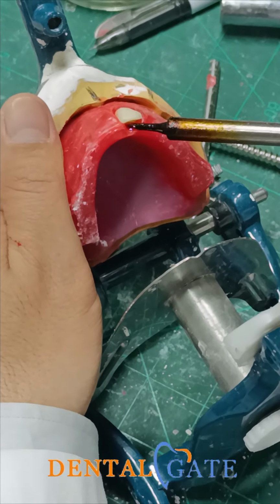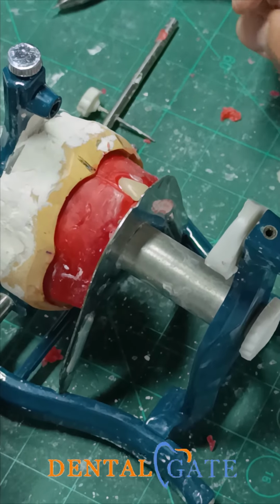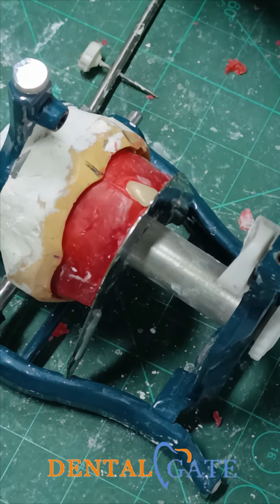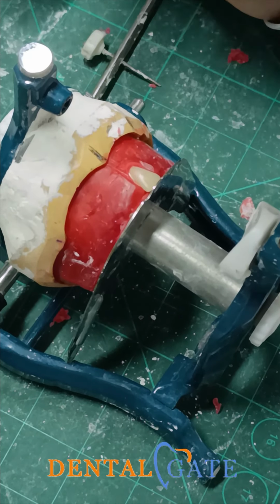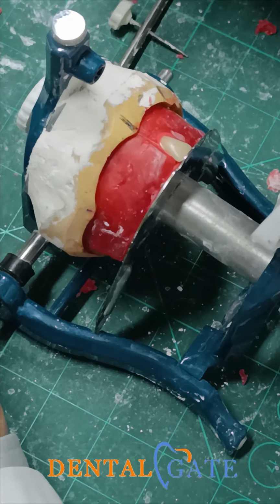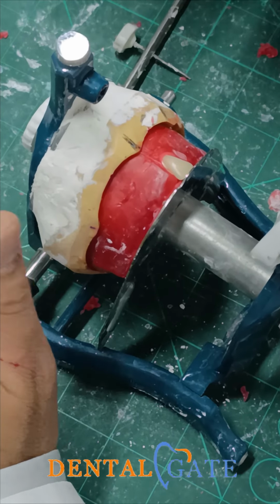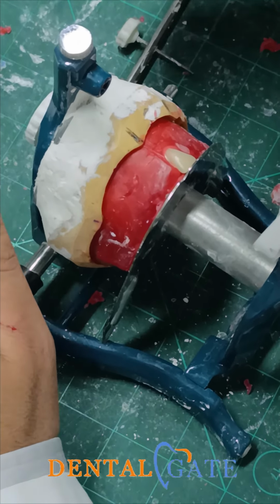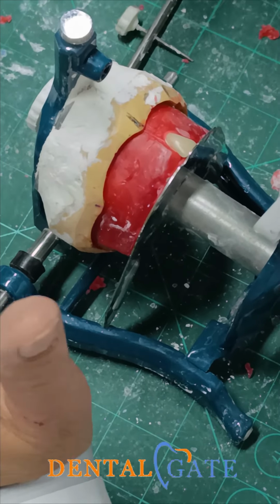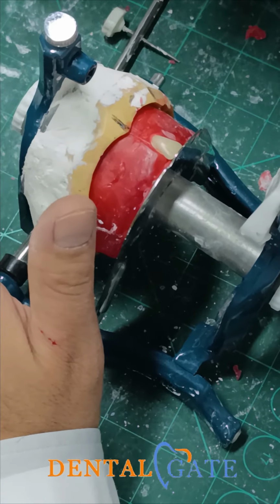For the central incisor. For the lateral incisor, there are two conditions. If you want to make it at the level of the central incisor, some references say that, because if we have an old patient with parafunctional movement, and we don't pay attention to the esthetics, we will make it at one level. But basically, typically, we will start with no contact, if we want to apply the balanced occlusion criteria, because it will affect the incisal guidance, okay?